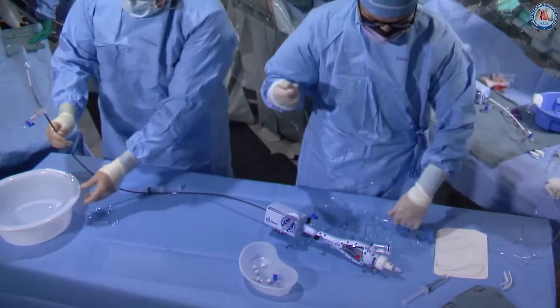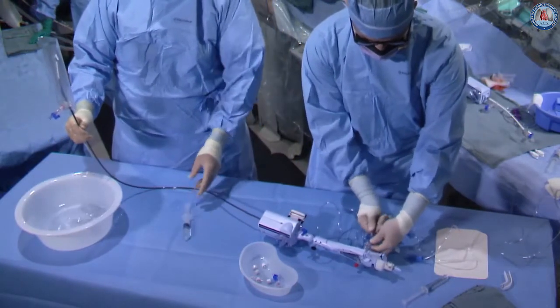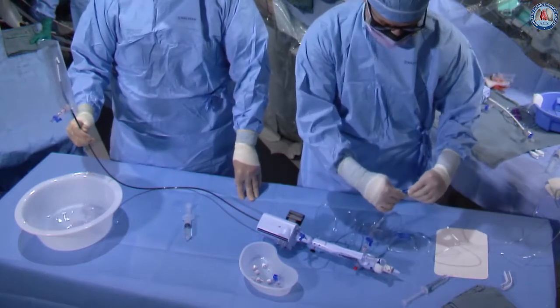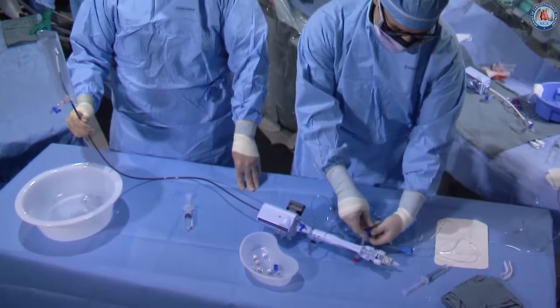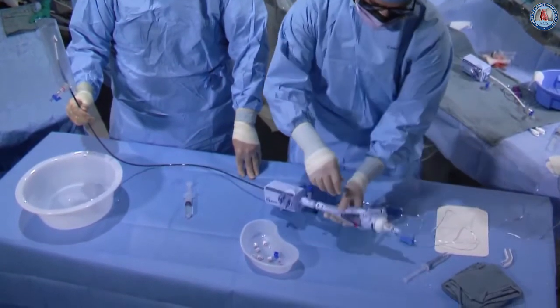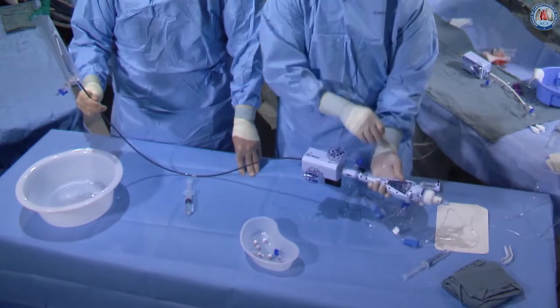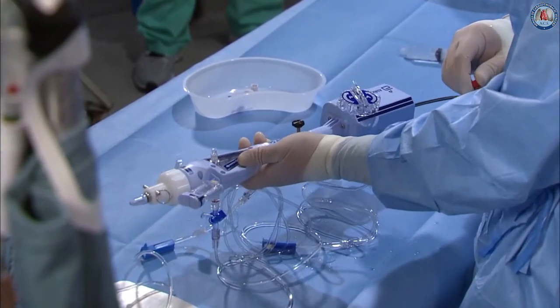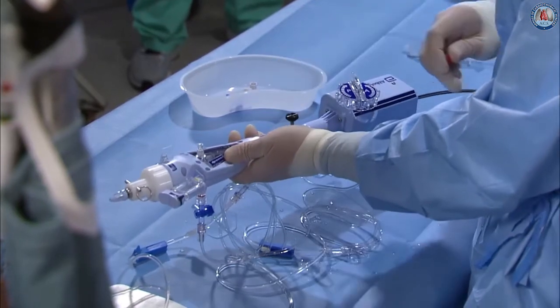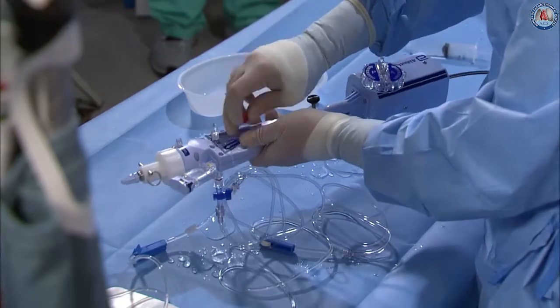In addition, the secondary line of flush, which goes to a separate bag, will be connected here to fill the chamber. We turn on the flow of fluid to the back chamber, release the red cap, and then the chamber itself will slowly fill with liquid, making sure all air bubbles have come through where the cap is.